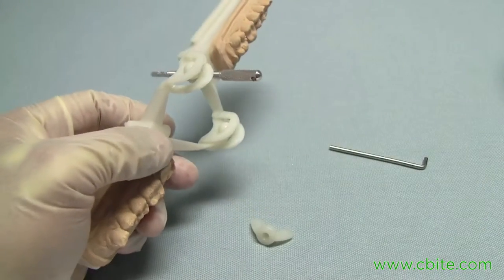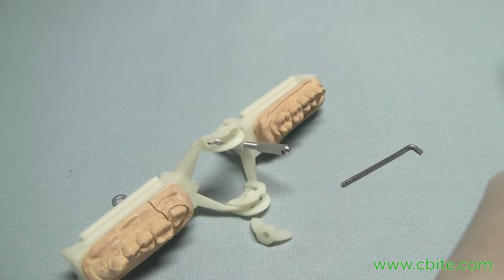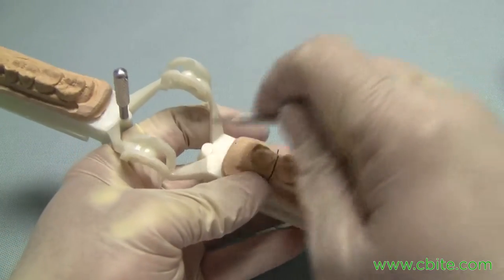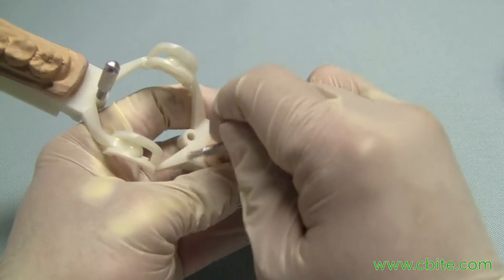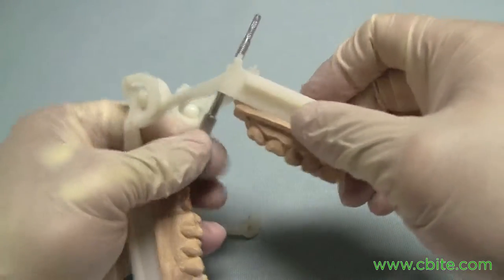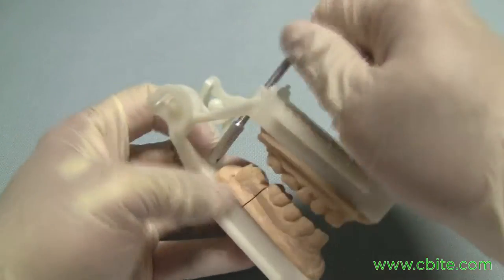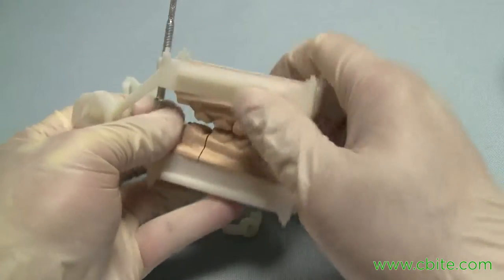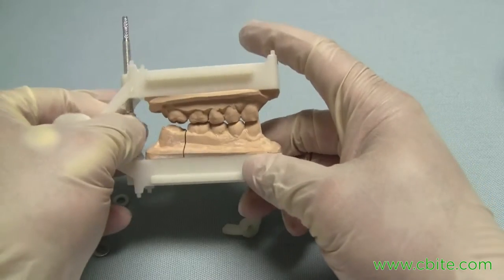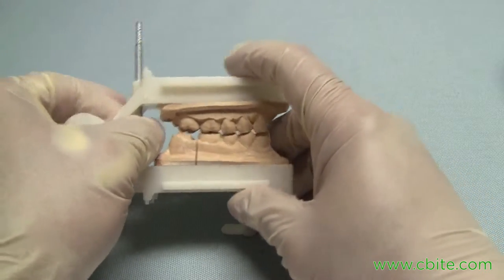You need to get that membrane out of the way on the opposing side. If you don't remove it, the pin won't have solid footing. Just break it out so that when the backstop pin rests on it, it's resting on a solid structure as opposed to a membrane, which may give you a little bounce.